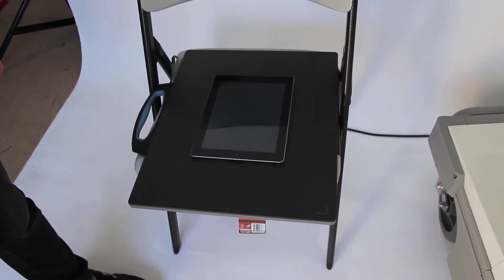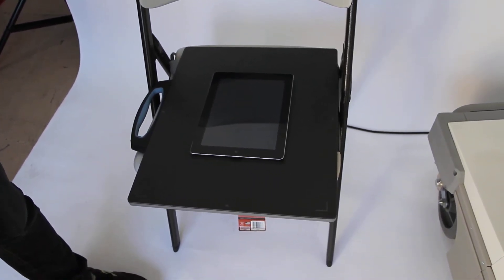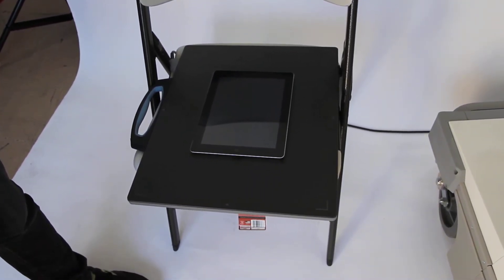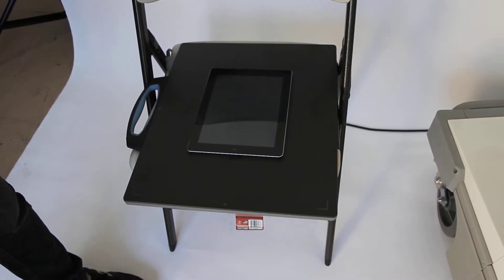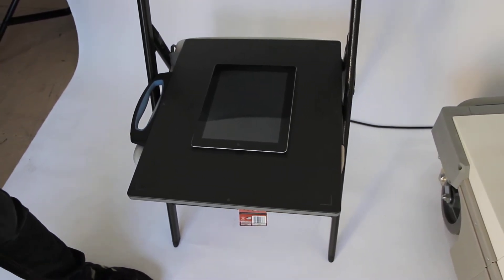Right now we're going to take a quick demo using this iPad as our test image base.